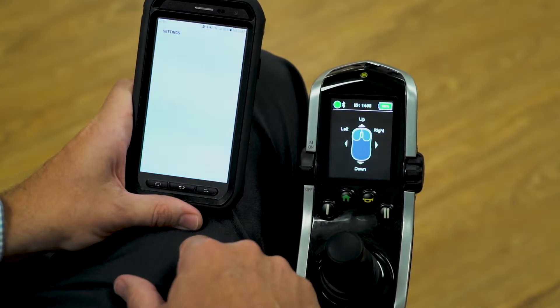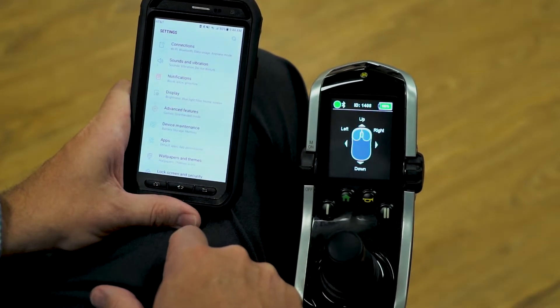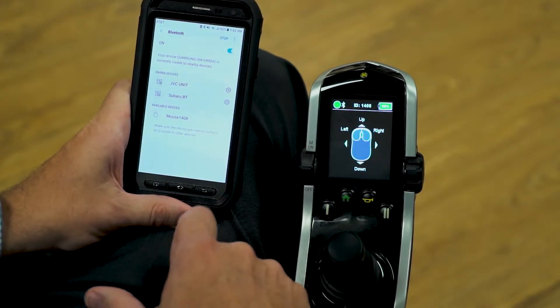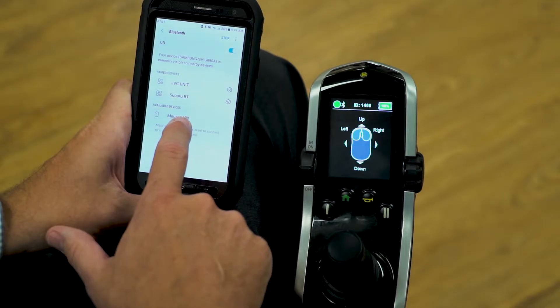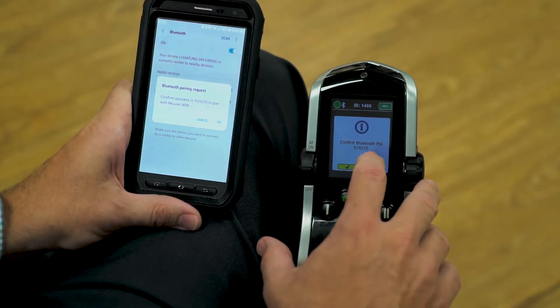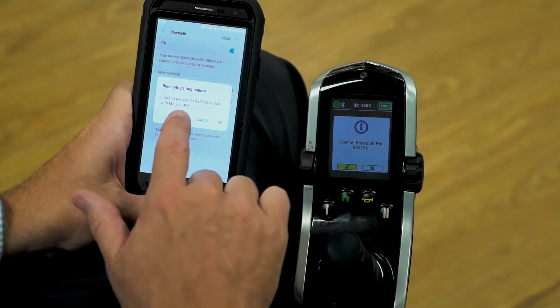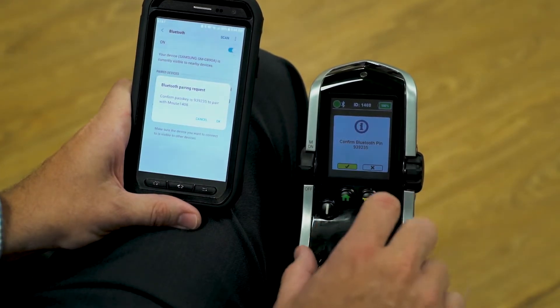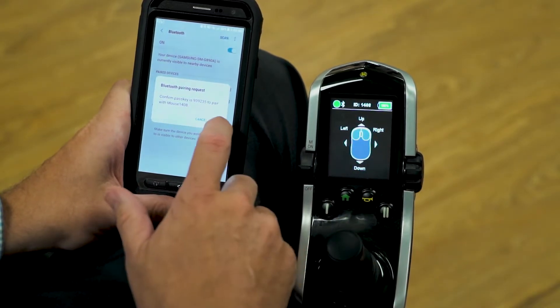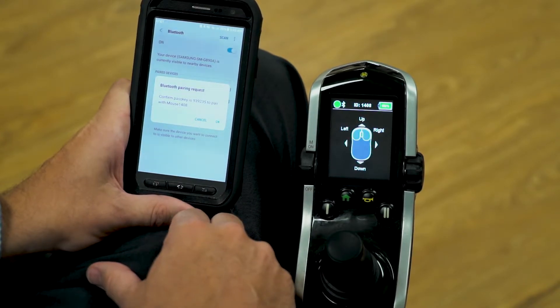So I'm going to the settings menu of the phone. I'm going to go to connections, then Bluetooth, and here we have mouse 1408. I'm going to click on it, and on the electronics, I have to confirm the Bluetooth pin. They look the same, so I'm going to give a forward input on my input device, which accepts it, and then click OK to the pair request on the Android phone.